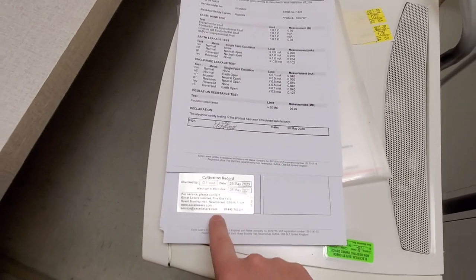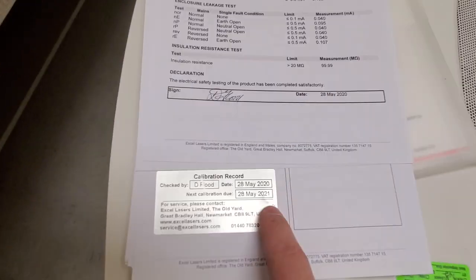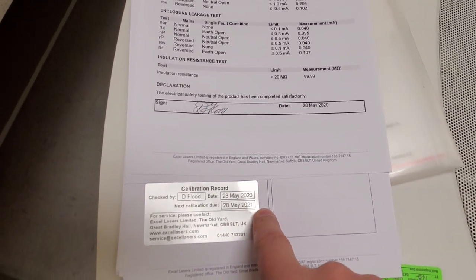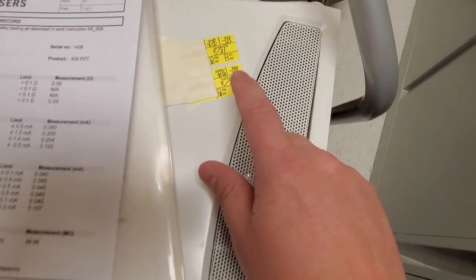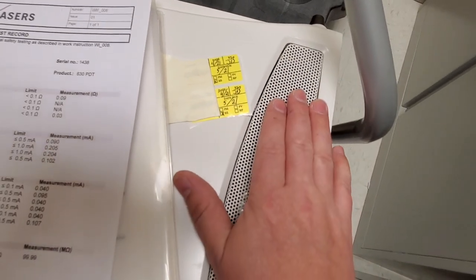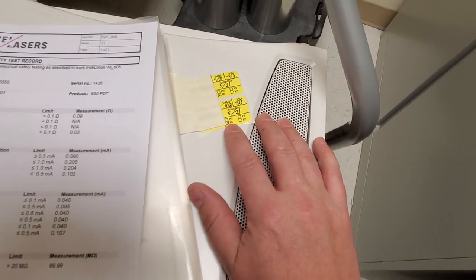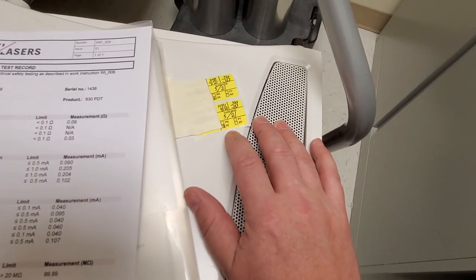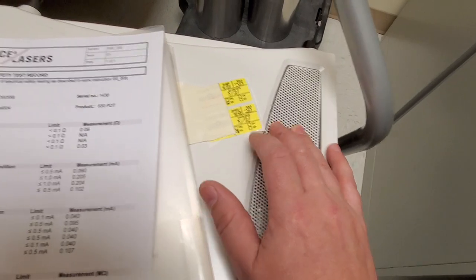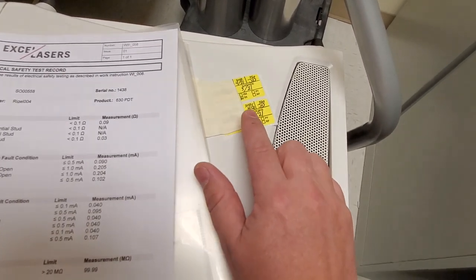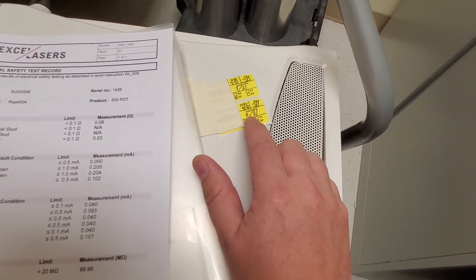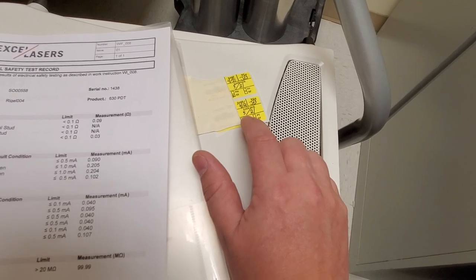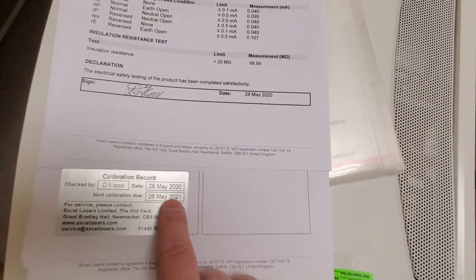And the calibration form. This is the most important part right here, the calibration form. You can see that it's due in May of 2021. Now, usually, you can tag something if it's going to be in the facility for six months or less. But here, you can see I've got my tag. It came in this month.